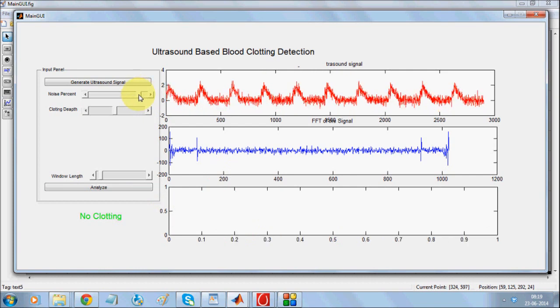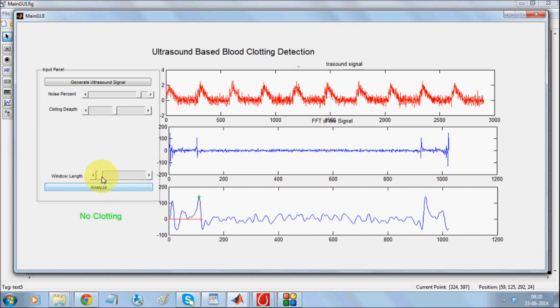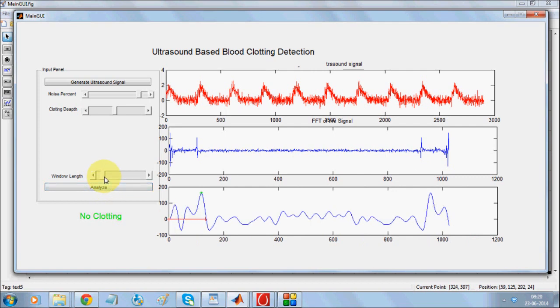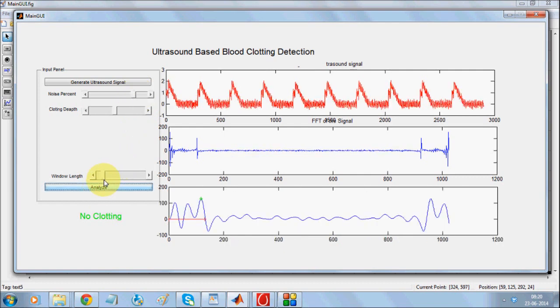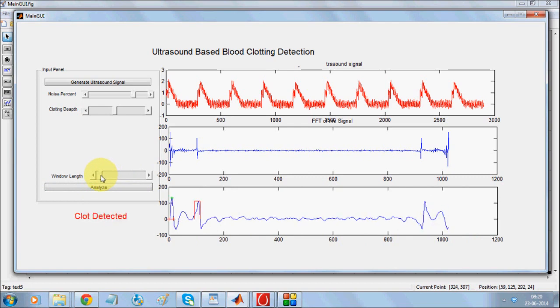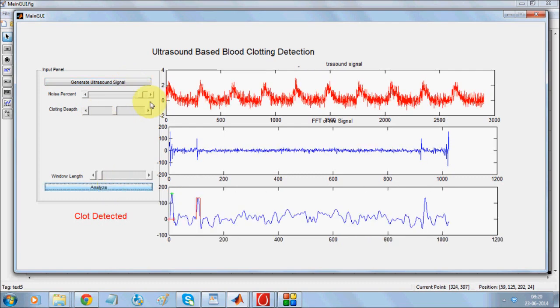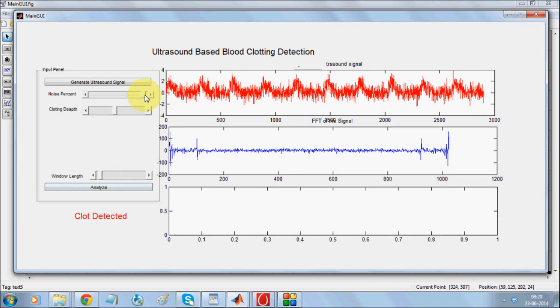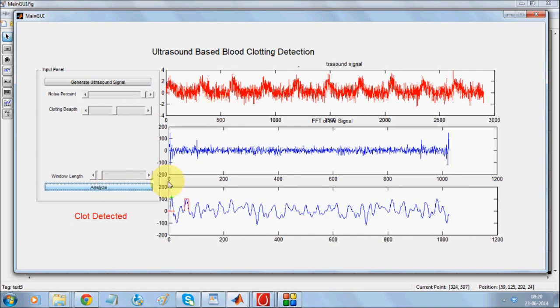When the noise dB is below a threshold — specifically when the SNR is more than 10 dB — this program can easily process the ultrasound signal and detect easily. This is the basic label, and with this, if you increase the noise percentage, it is still able to detect, but only up to a certain range.